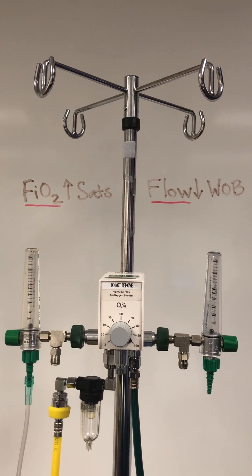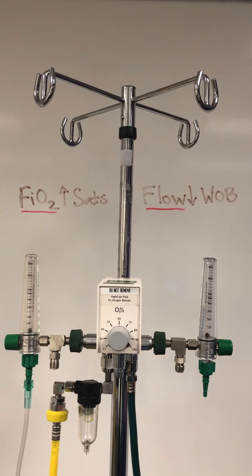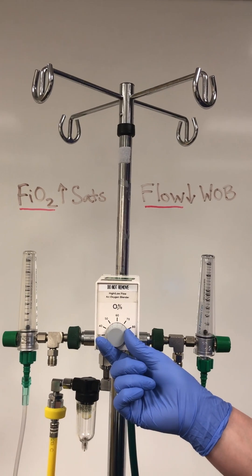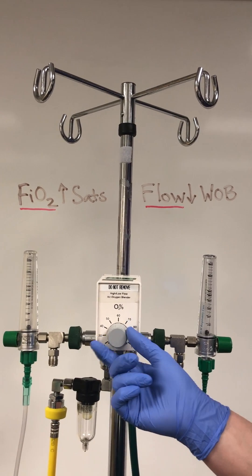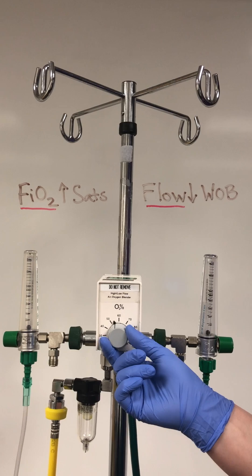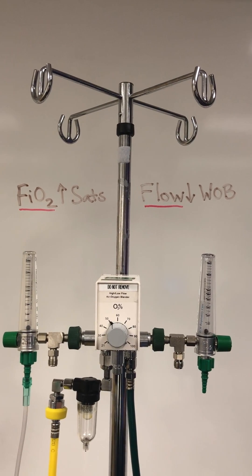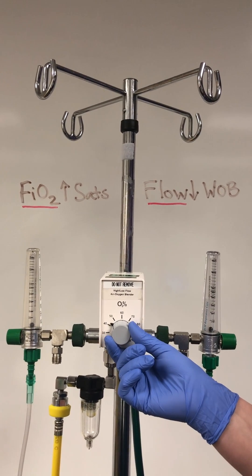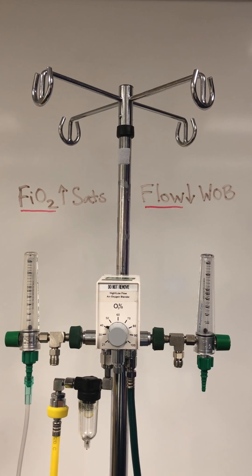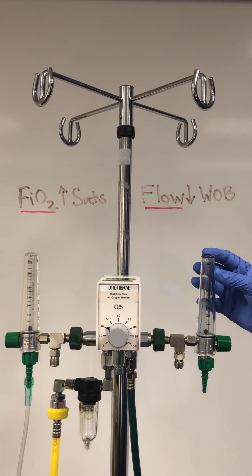The flow rate will start at six, seven, or eight liters. Your FiO2 will start at 100% and then will be rapidly weaned watching the saturations to maintain saturations greater than 90%. Once we've reached 40% on our FiO2, then your RT will start to wean the flow rate.